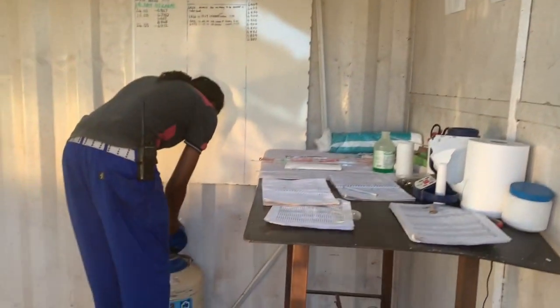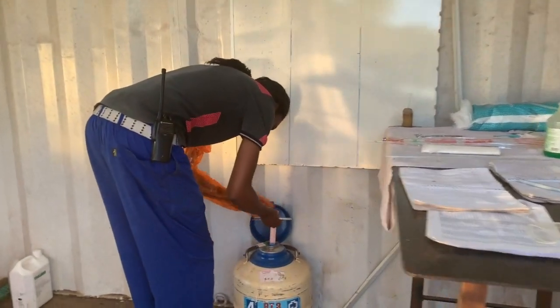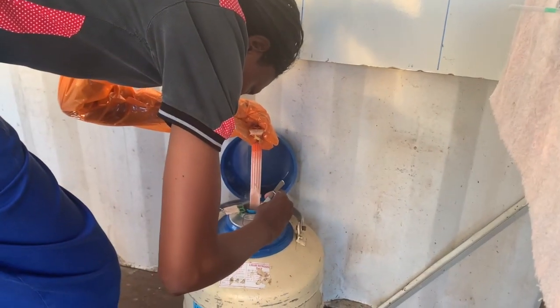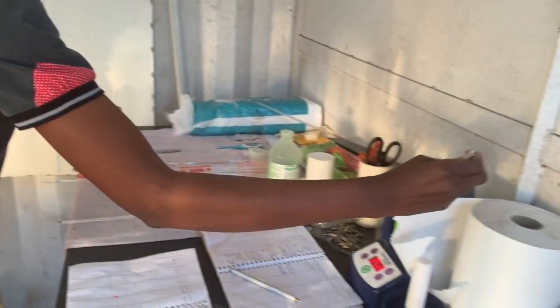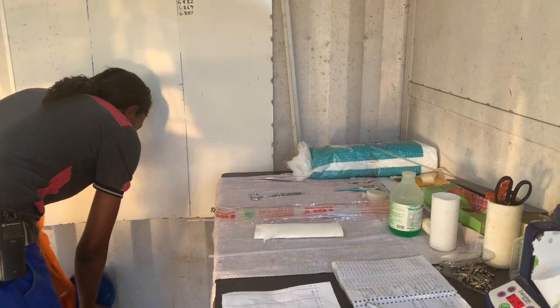Knowing which straw you need to select, you do so with your tweezers, taking care not to lift the canister above the nitrogen level in the flask. Do not use your fingers to remove the straw as this will prematurely thaw the semen. Place your semen straw immediately into the thaw machine and close the flask straight away to prevent any liquid nitrogen being wasted.